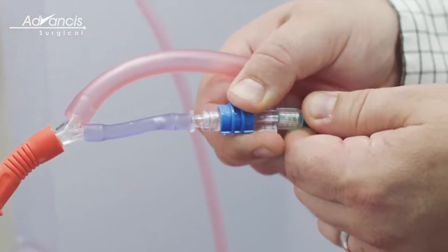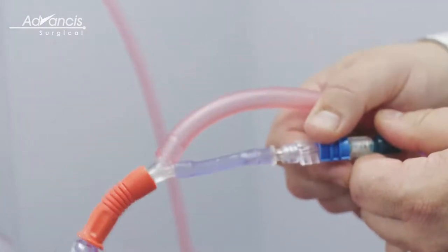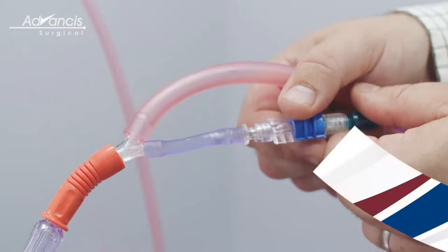Close the on-off switch at the suction wand end. When blood is being collected, ensure the switch is reopened.